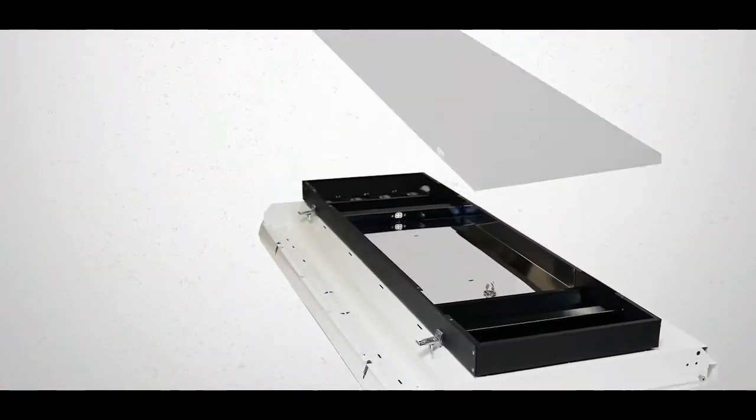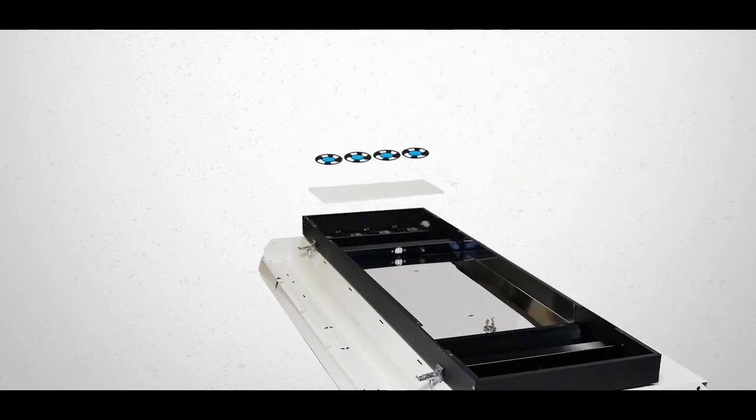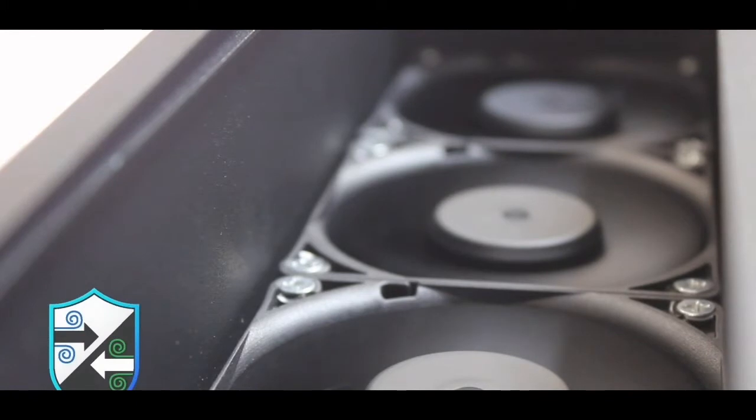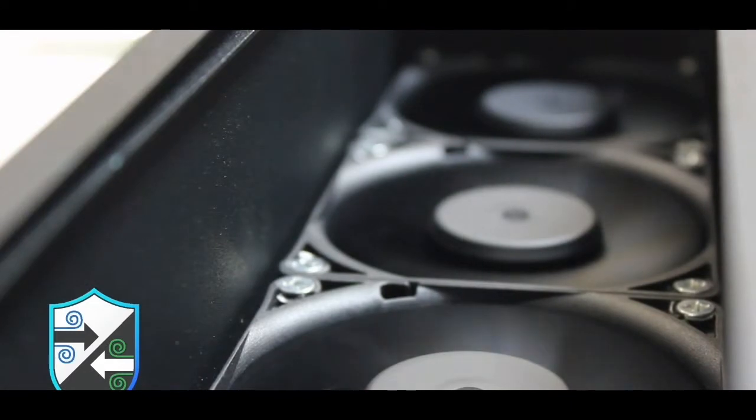There are two vents on the face of the fixture. Behind one of these vents is an array of fans which create a differential pressure to draw air from the space. This differential pressure does not affect the negative or positive pressure designed into the healthcare facility but does act to isolate the contaminants in the air.